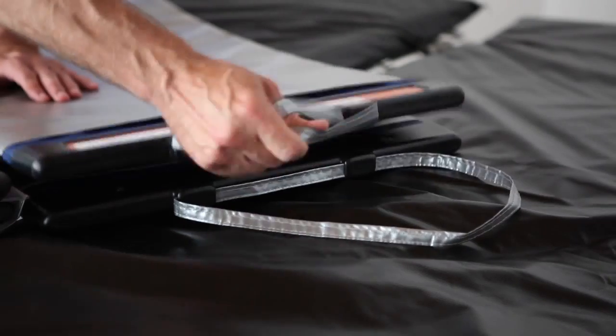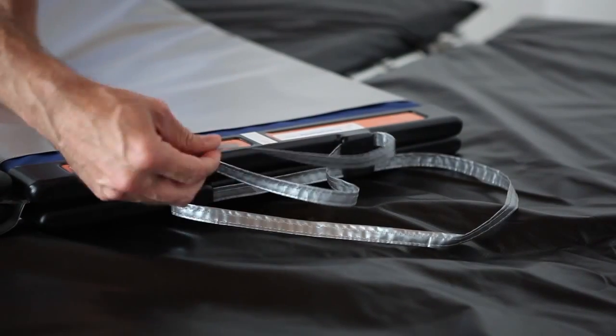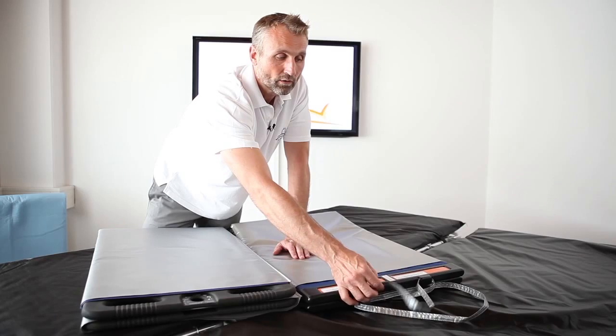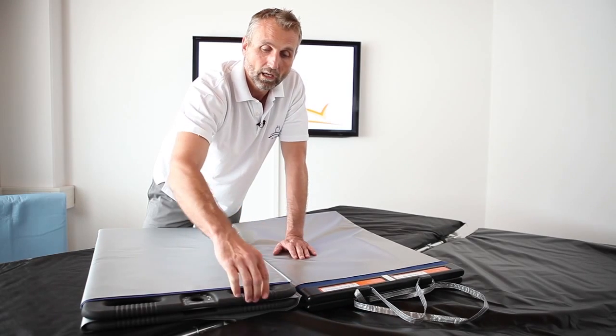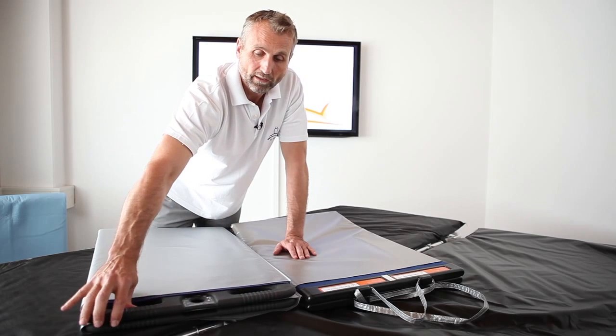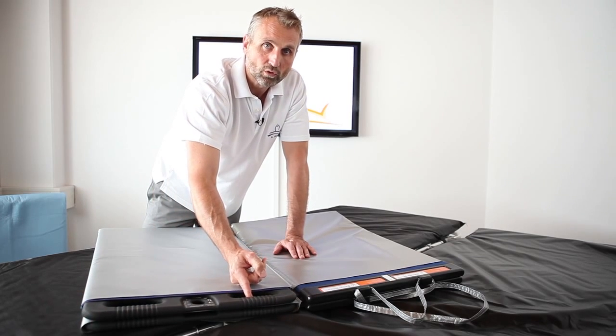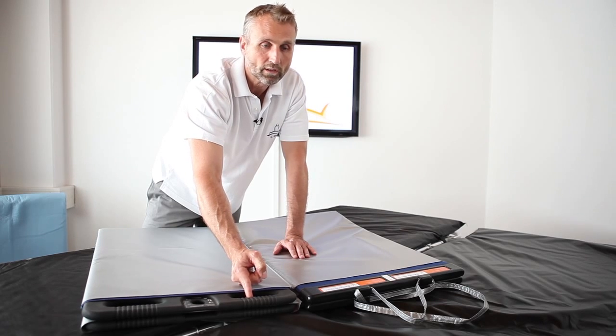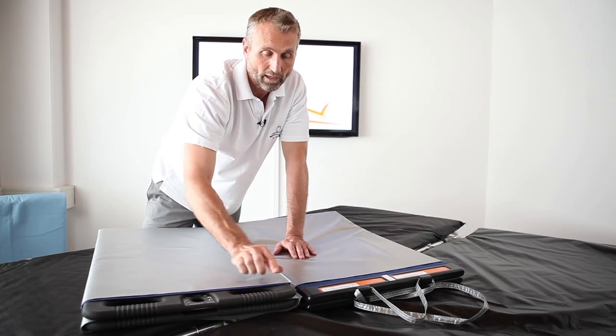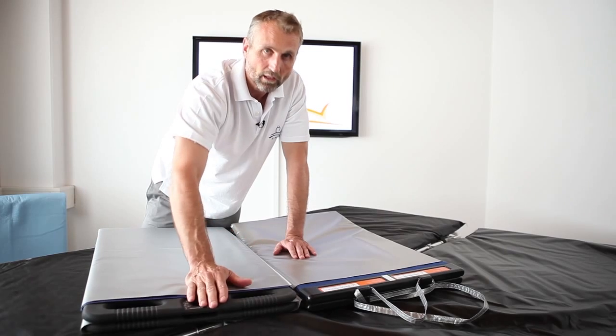Also these stripes are only to hang it on the wall to mount it — not to carry anything on it. Our handles here at the PTS will lift up to 200 kilos. So this is a very important difference to the old one, and that's why we call ours EVO.